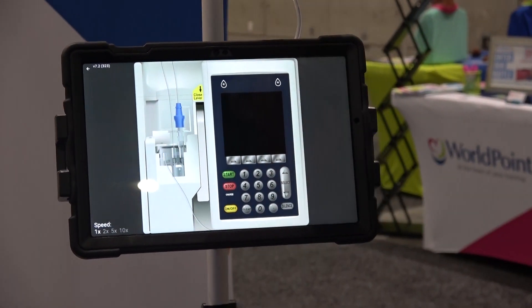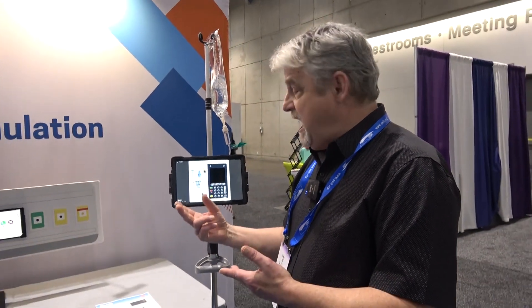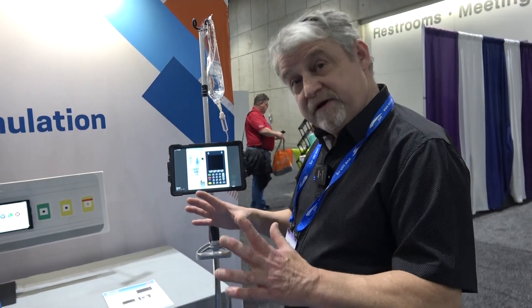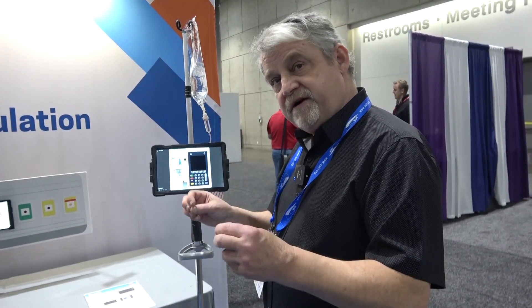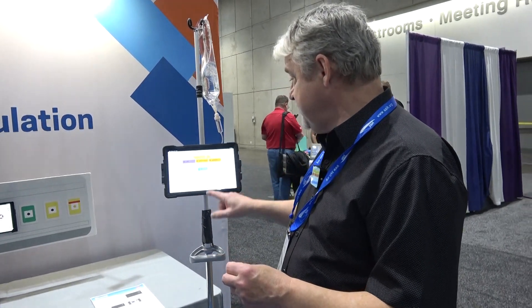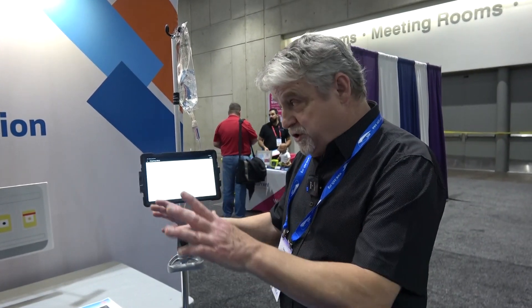For all of the pumps, we can do primary, secondary, and bolus — volume-based drugs, weight-based drugs, and dose-based drugs. We understand that people use many refurbished pumps, but on those refurbished pumps it's very hard to add drugs to the drug library. With our system, there's a built-in drug library and you have total control about adding new drugs to the system.